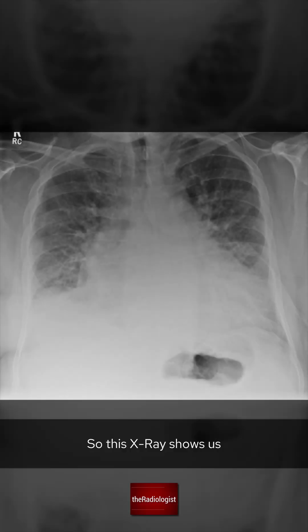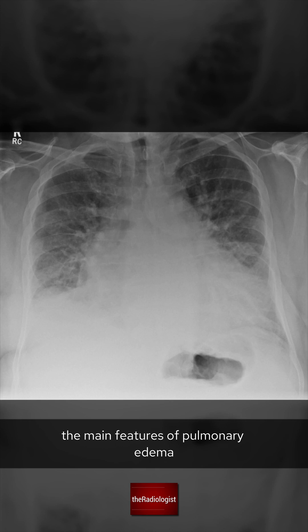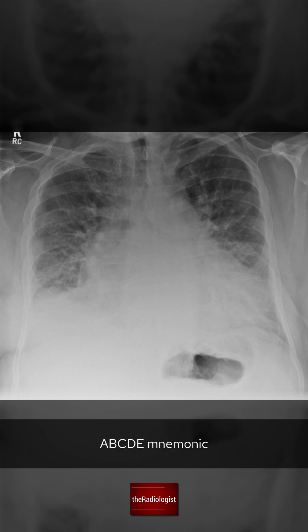This x-ray shows the main features of pulmonary edema, which you can remember with the handy ABCDE mnemonic.